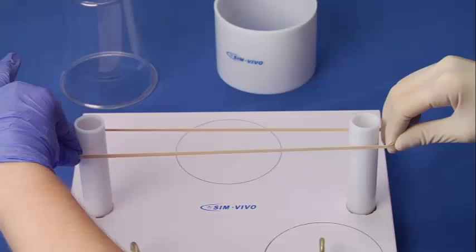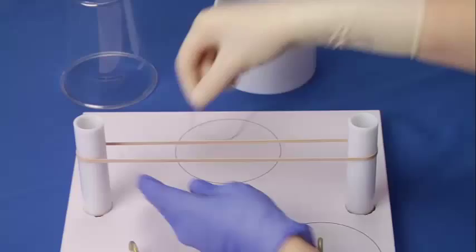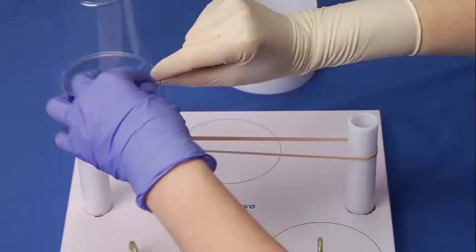To practice this, start by placing a rubber band around the posts. Pick a spot about one-quarter the distance from one post. If you place a regular two-handed throw at this point, it is likely to come apart.